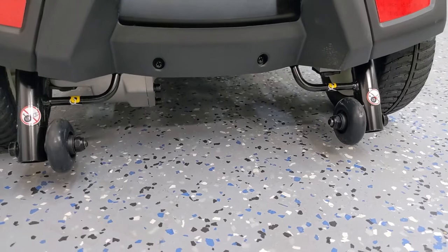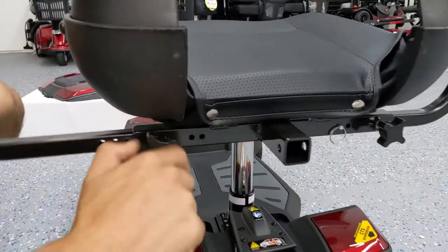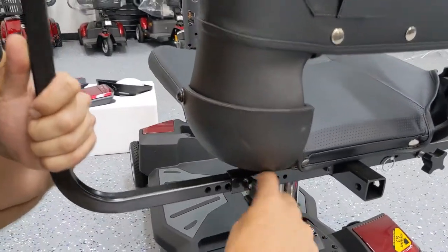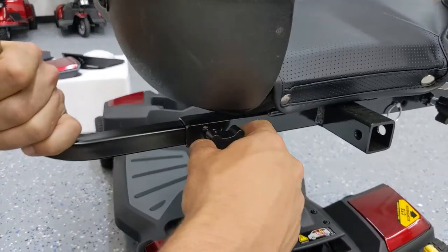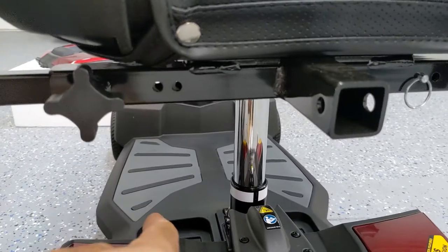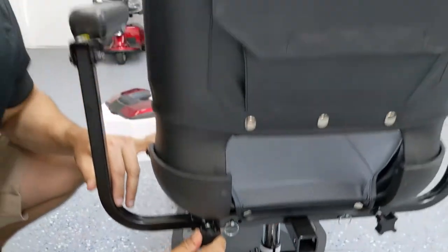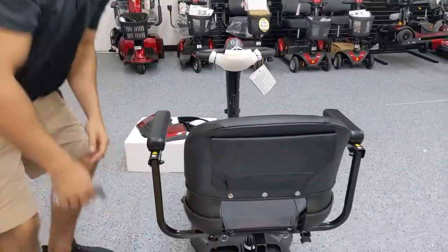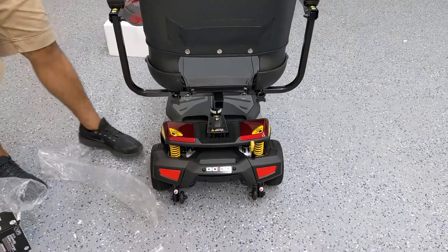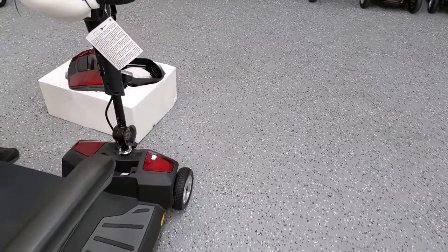This particular unit has full rear suspension — it's very, very smooth. Great for going on long trips to a theme park or some sort of all-day outing. The battery lasts a long time. I personally have used it for an all-day outing and the battery didn't even drain halfway.